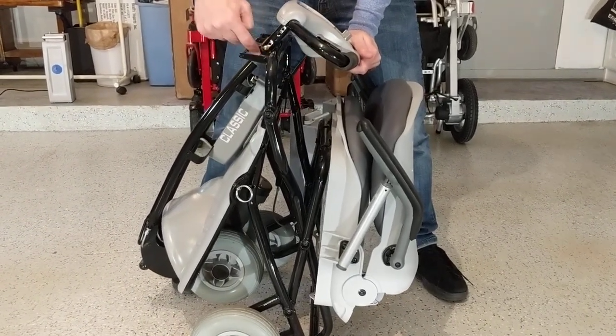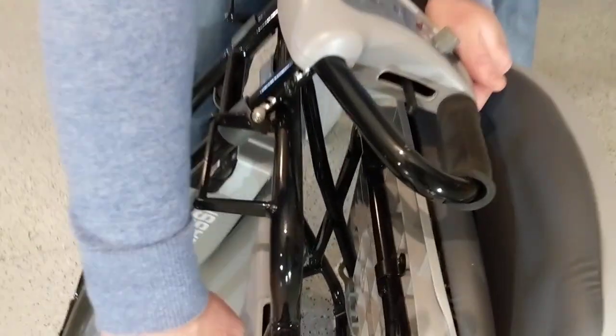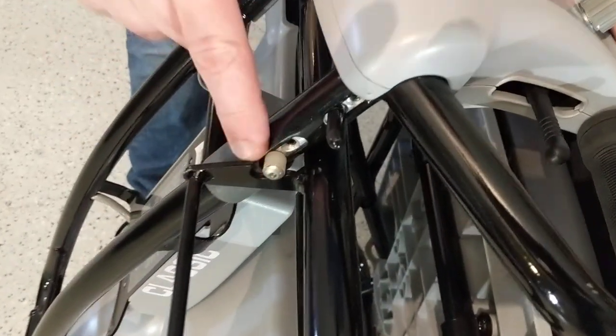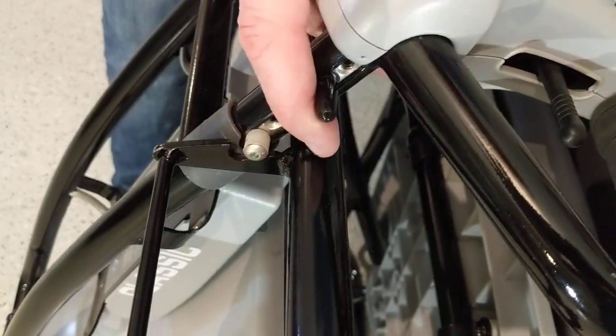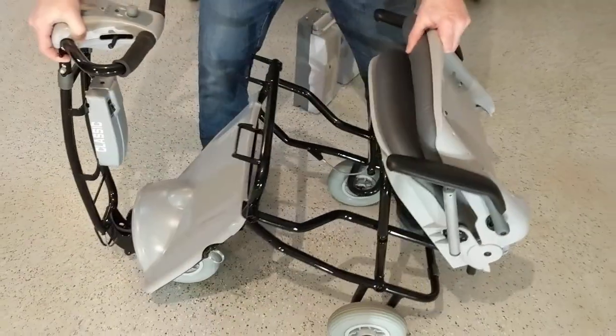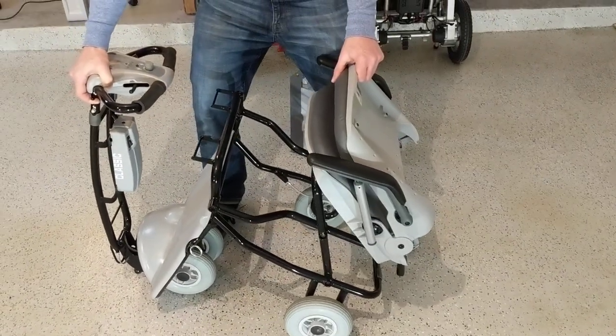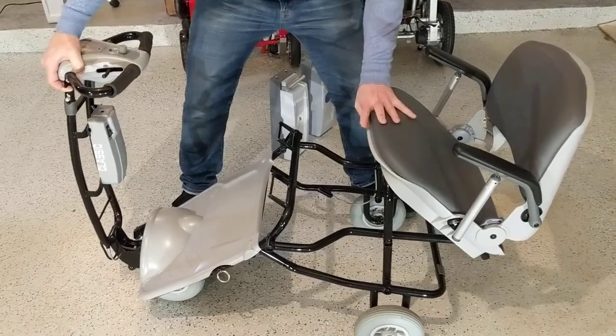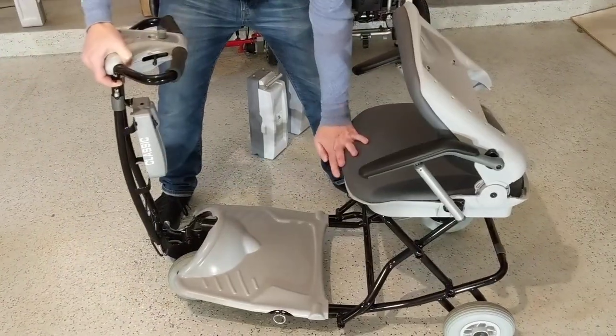This will literally just kind of swing open. Now the next thing I want to do — let's take a look right up here. Now that we've unlatched this, we have a second latching mechanism. This tiller latches it so it doesn't come apart. This little part right here — we lift it up, that releases it, and then I'm going to put the front wheels on the ground, hold the back of the seat, and just let this open up.